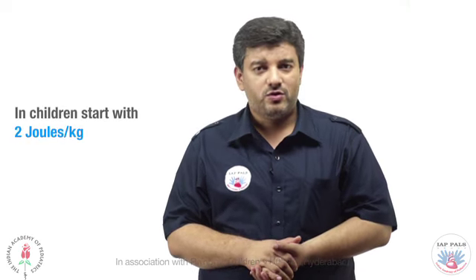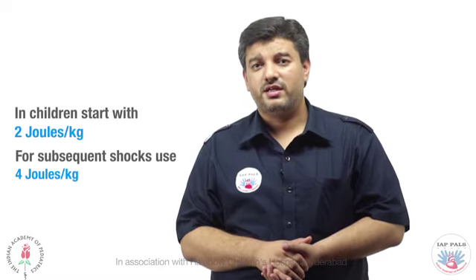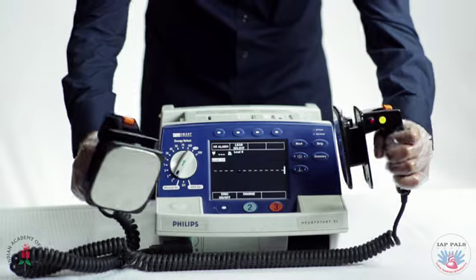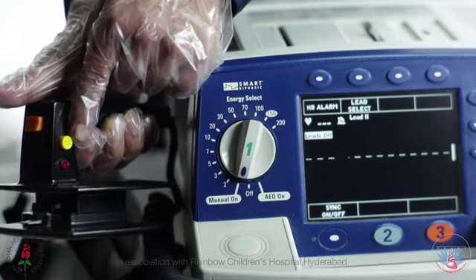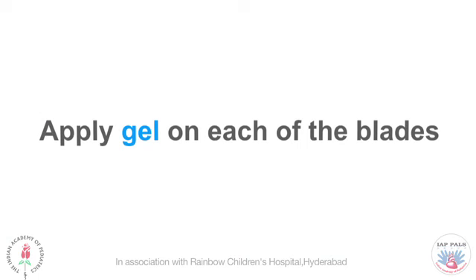In children, start with 2 joules per kilo for the first shock, and for subsequent shocks use 4 joules per kg. Remove the pads from the machine and hold them in your hands. Press the charge button to get the machine ready to deliver the shock. Apply gel on each of the blades.